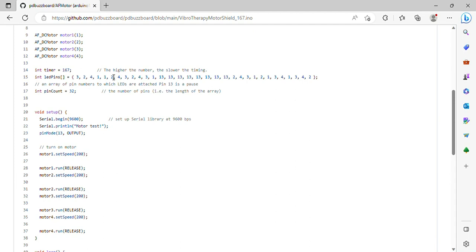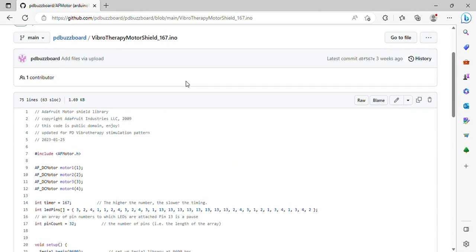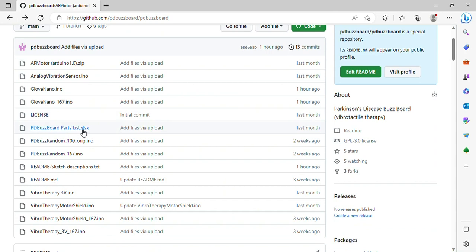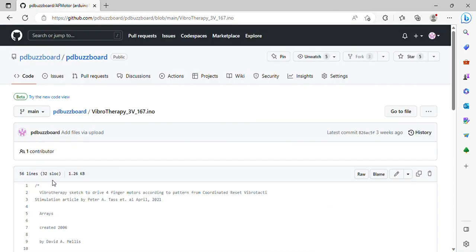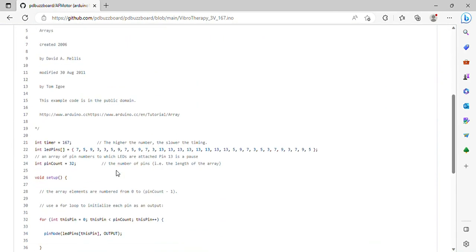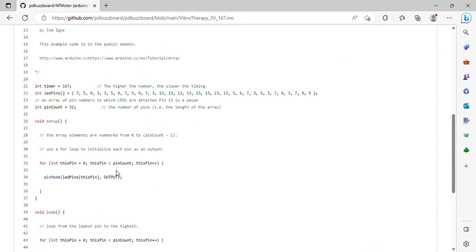So if you want to modify the code, that's the place to go — this is the motor shield. If you go down to the nano code, you will see it is very much the same, same author, same stuff. The difference here is, as you recall when we built it, index is three, second finger is five, ring finger is seven, pinky is nine — same number 32, but the pins are different. So if you're modifying this code, you need to stick with the actual direct drive pins, as opposed to the other code that has the motor number.